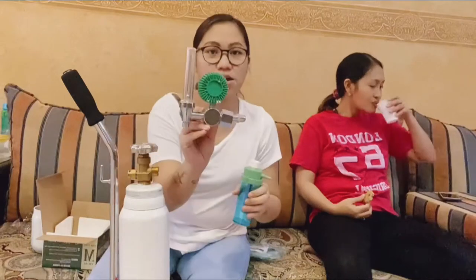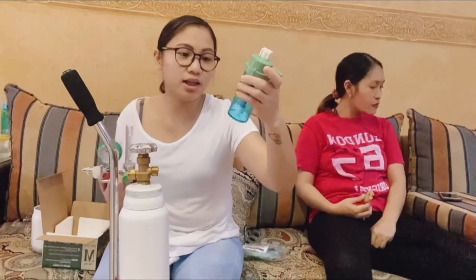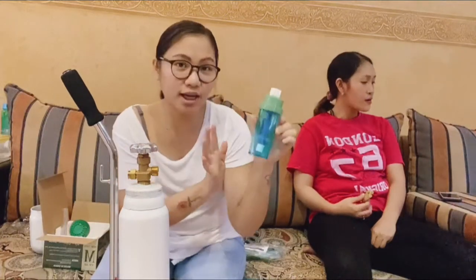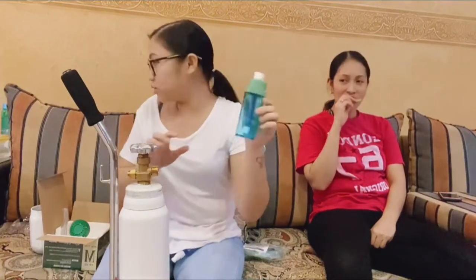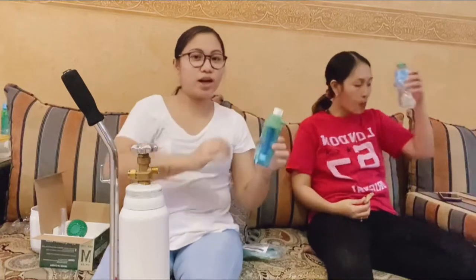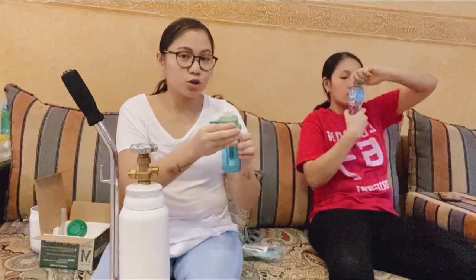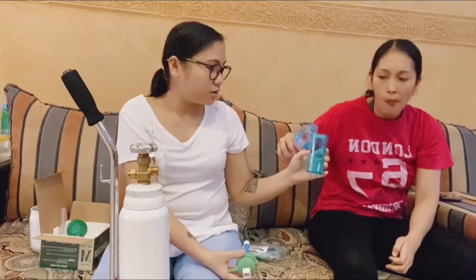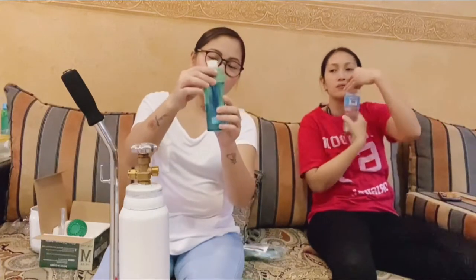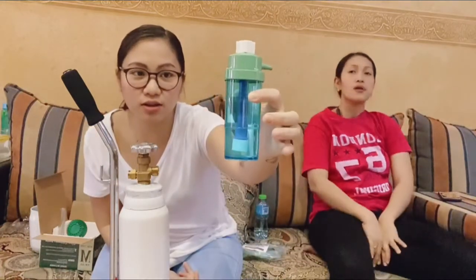So first, guys, I have to put water. We fill it with water up to the water level — meaning we put water here. We fill it with purified or distilled water. We only need it up to the water level line. So I'll just put it here. We'll fill it with mineral water. Okay, that's it — it now has water, right up to the water level.